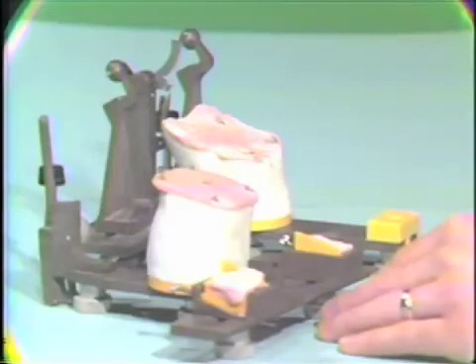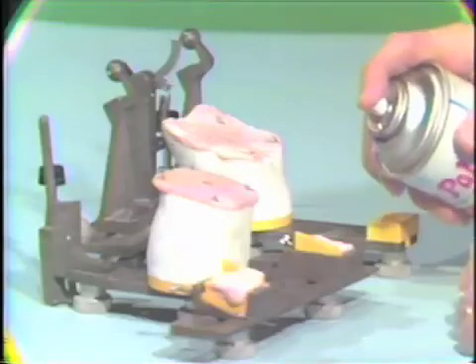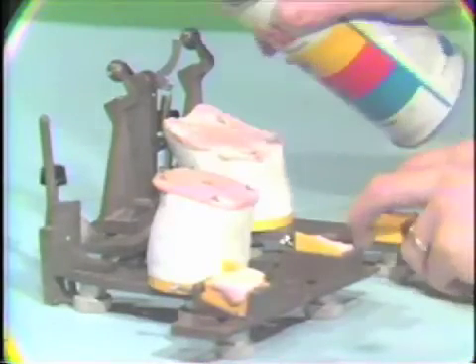Okay, now to ensure that we don't get this acrylic sticking to the condylar balls, take a little of our lubricant here again and spray the tops of this acrylic as well as the tops of the condylar elements on the lower member. Then we'll go ahead and place these two together.